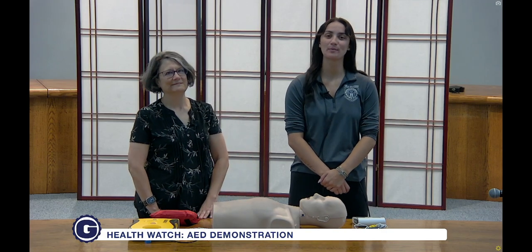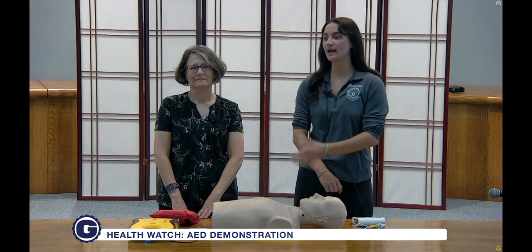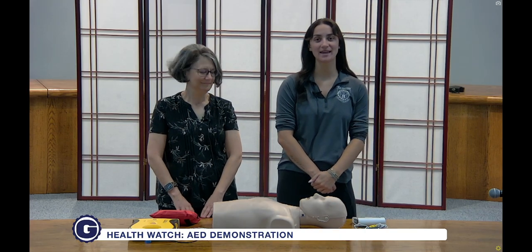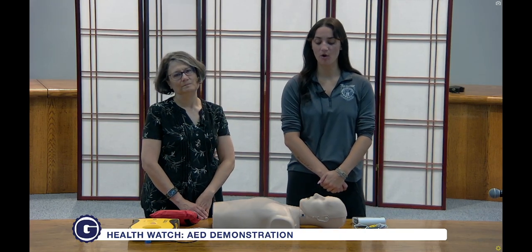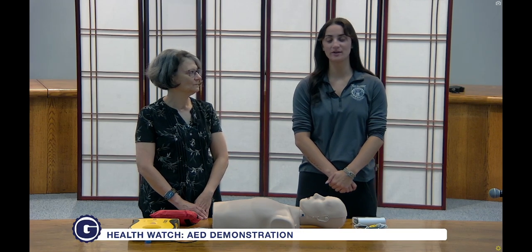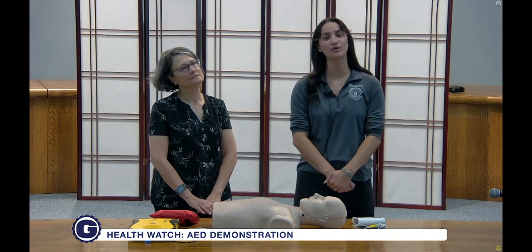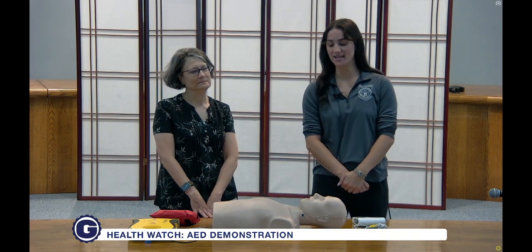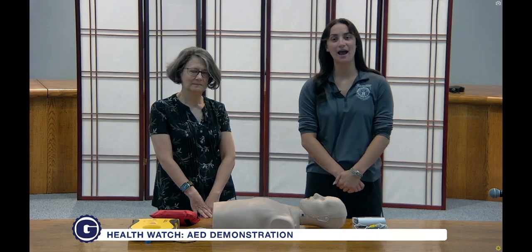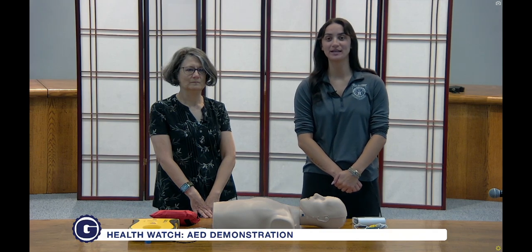Hi everyone, my name is Nina Robertson. I'm a health educator with the Wallingford Health Department, and today I'm joined with our public health nurse Ann. So today we are going to be talking about all things AED. I understand that Ann has a few questions for me, and we're just going to go over those so we have a better understanding of AED usage and how we can make them make a difference in our community.